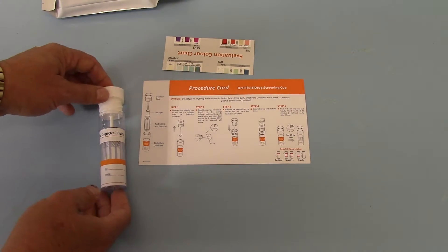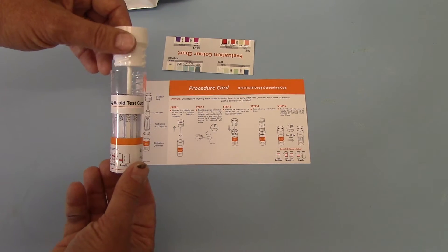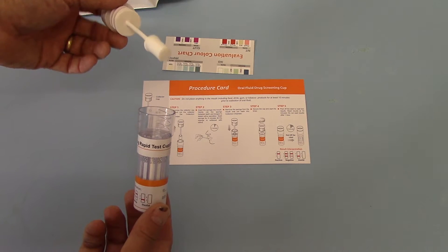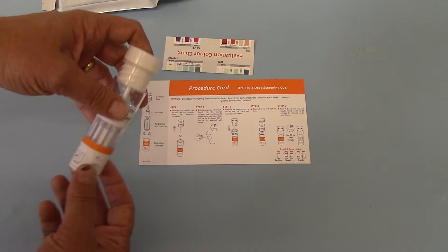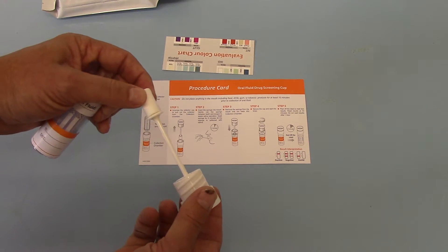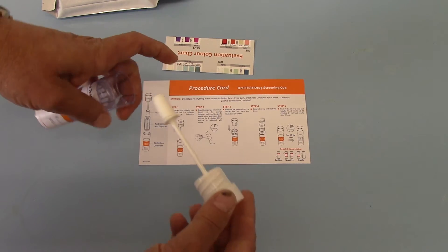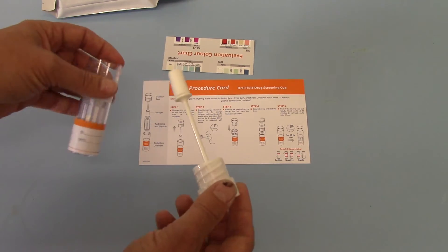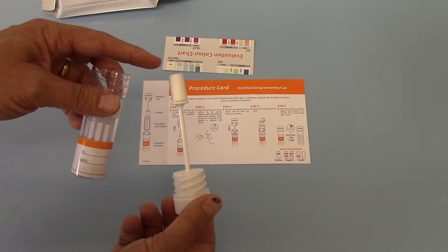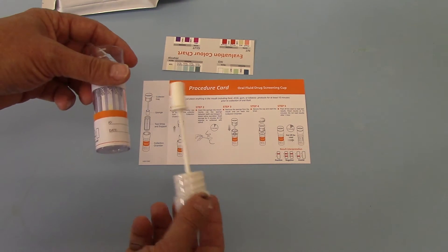The inside test is a barrel design with a collection swab on a stick. When this is first presented, the collection swab is very firm and rigid and the test will not lock together. It will only lock once that has been saturated in saliva and softened.